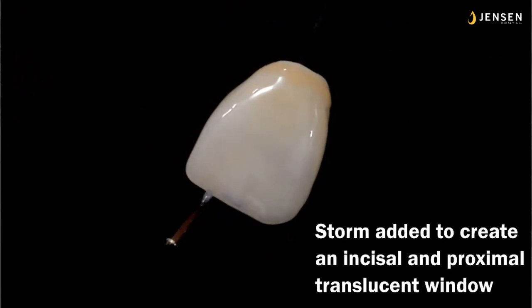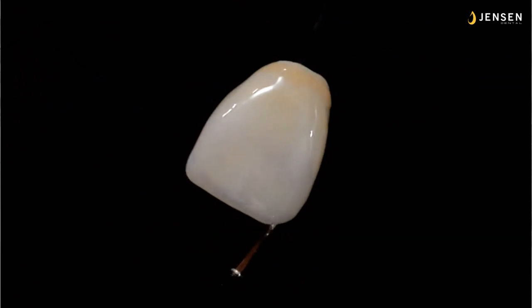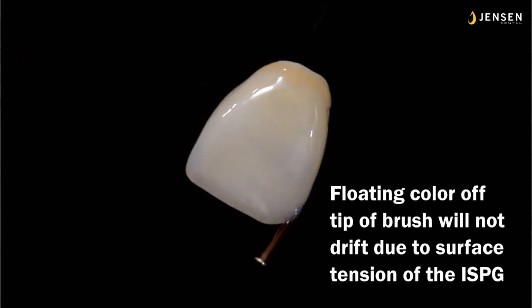And so now I'm adding storm to create an incisal and proximal translucent window. The storm is a blue-gray. And again, if you have the paste glaze down first, you can put on very, very thin amounts, and it'll stay right where you put it. It won't ball up. It has a surface tension that if you have it a certain thickness, it'll obviously stay. But if you want it very, very translucent, you can put it on thinner if it goes on top of a paste glaze layer, because sticky likes to stick to sticky, and it stays right where you put it.